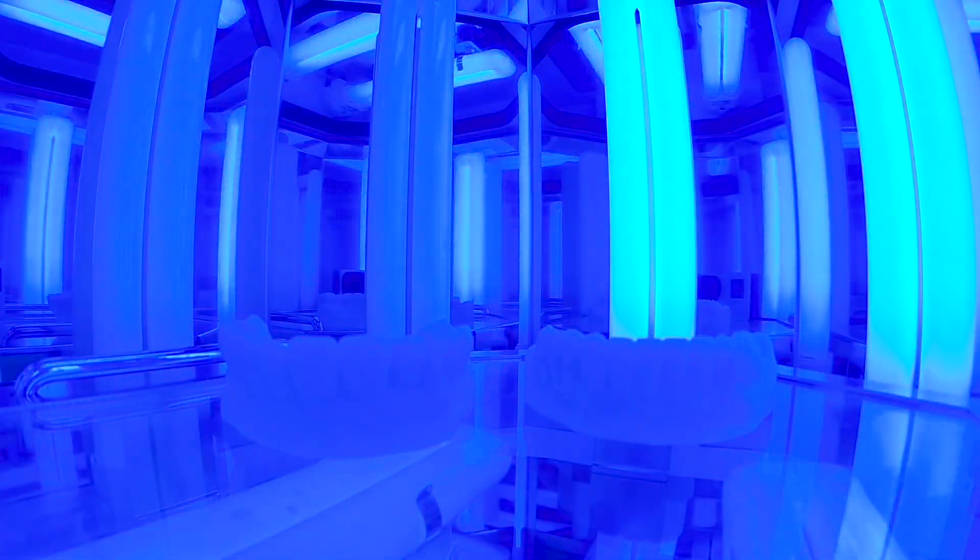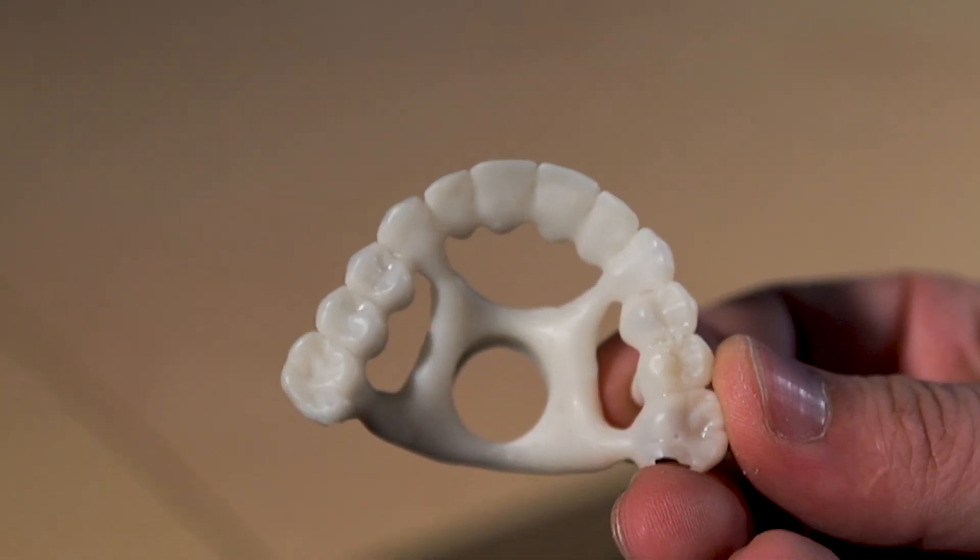When I design a wax up and I 3D print it, that goes to the doctor for the doctor to sell the case and say this is what we can do for you. When a patient is buying in on a $50,000 or $60,000 treatment plan they want to see what they're going to get.